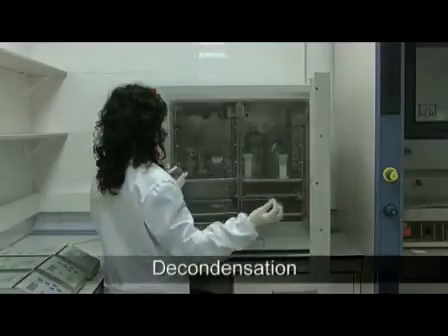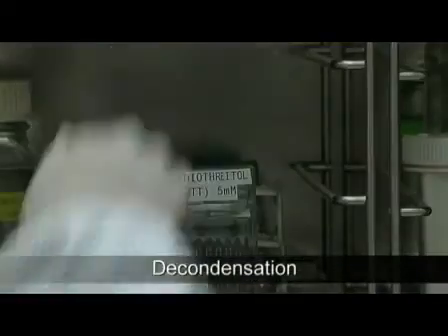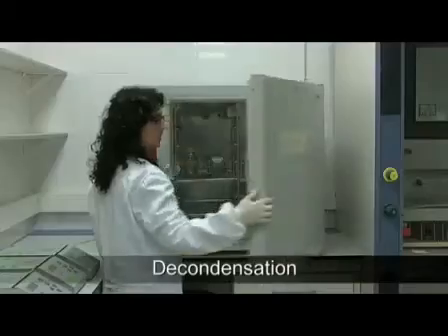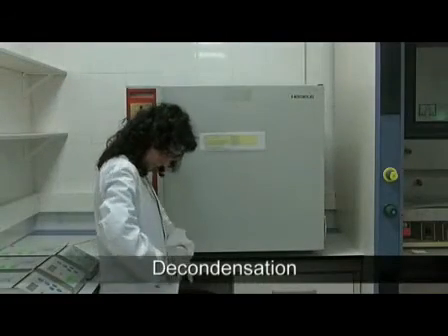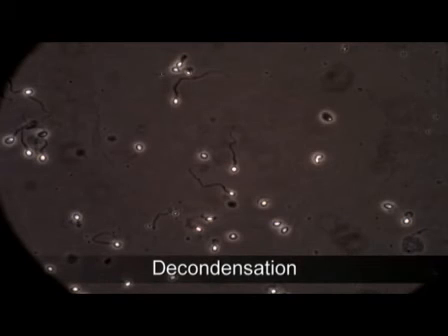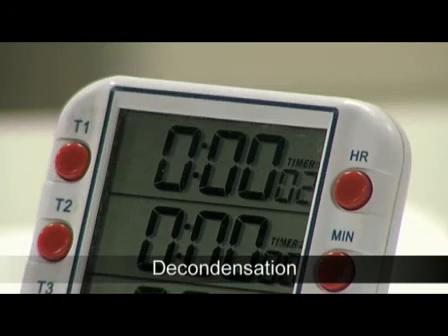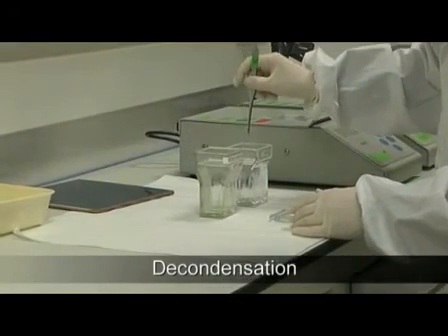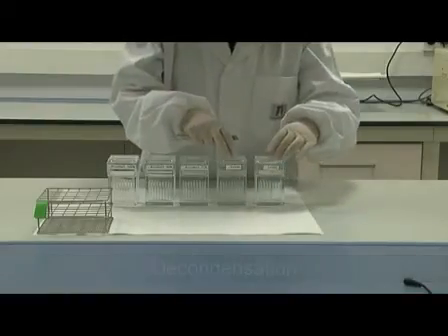In the decondensation process, the incubation time in DTT solution must be adjusted according to the reactivity of the semen sample to this product. Excessive exposure of the spermatozoa to DTT would result in dispersed signals at the end of the protocol, whereas insufficient exposure would result in zero probe hybridizations and a lack of some signals.